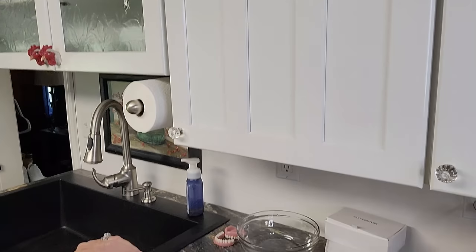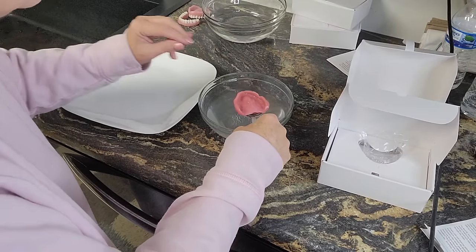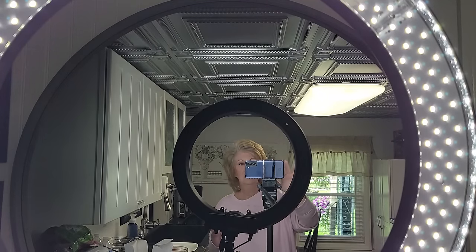We're going back in the hot water. Back in the hot water — I'm going to set my timer for 60 seconds. We're going to get them back out and set the timer again for 60 seconds. Behind me, filming, is a big mirror. I'm going to head to that mirror just to get my midline lined up.